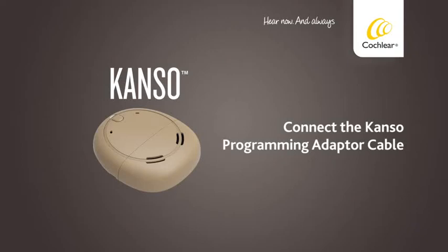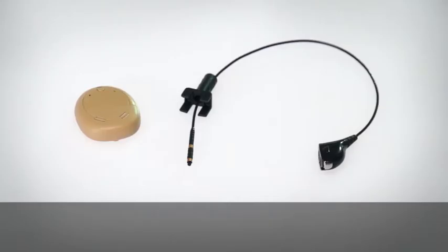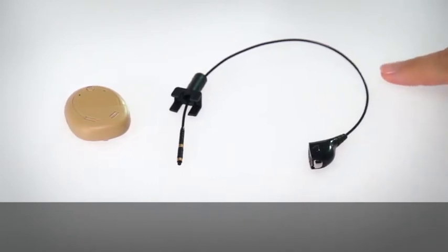Connect the Kanso programming adapter cable. The Kanso sound processor uses an adapter cable to connect it to the programming cable.